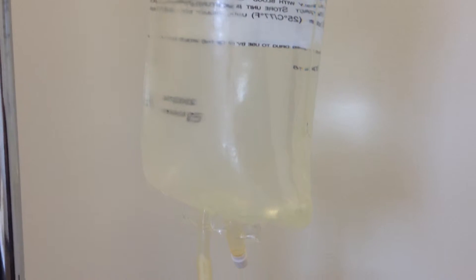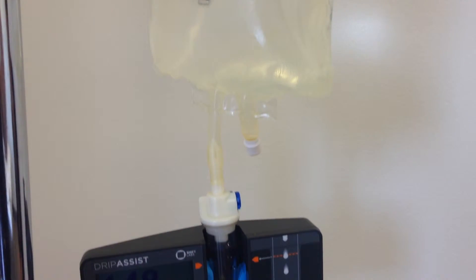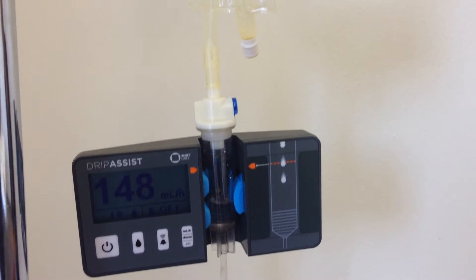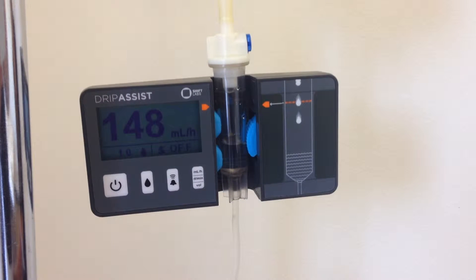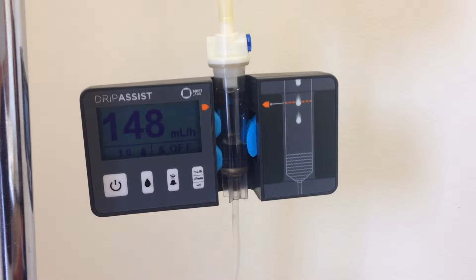This is true whether you are manually counting your drip rate, using a flow control device, or monitoring your flow with the drip assist. With the drip assist, you can be confident in the accuracy of the drip rate throughout the infusion process.